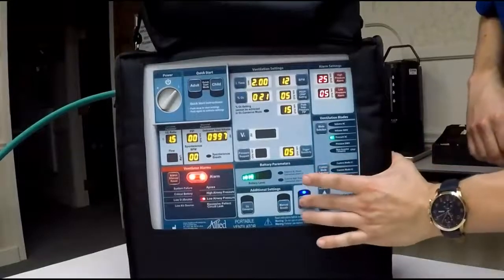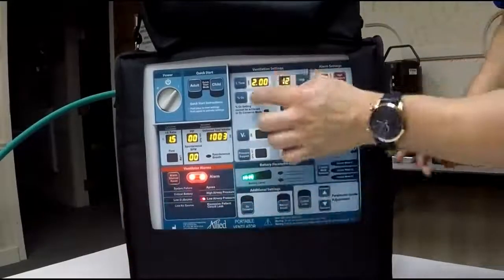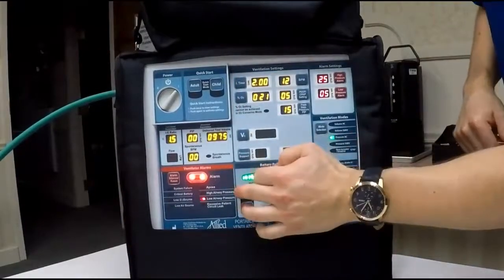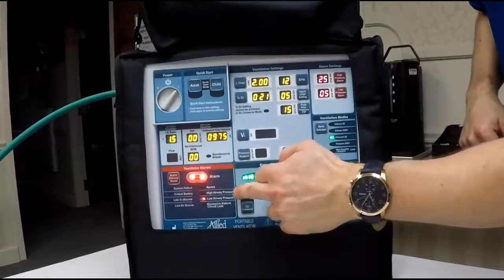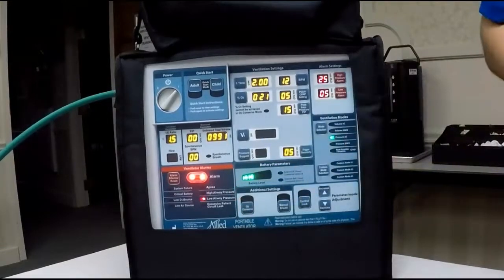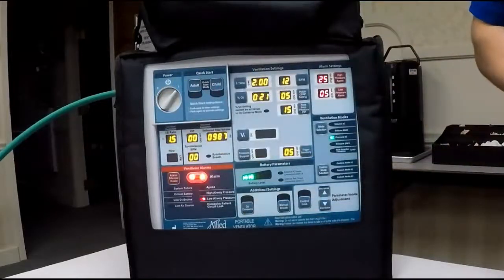Once you monitor the patient, you simply press control lock again when it's in the apnea mode, and from there you can make your adjustments upon monitoring your patient. You also have a high airway pressure alarm. You have a low airway pressure alarm. These two are obviously dealing with the patient's airway compliance, or that could also be doing something with the circuits that are hooked up currently. So if these are going off, you do want to check the patient, obviously, as well as your circuit hookups.